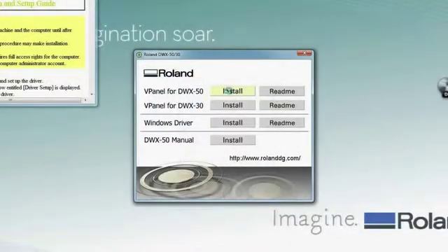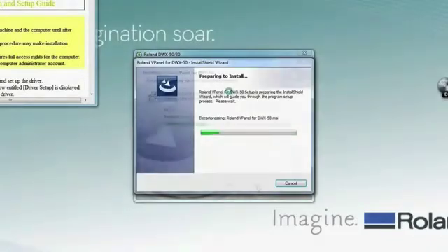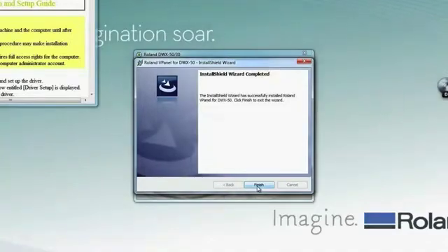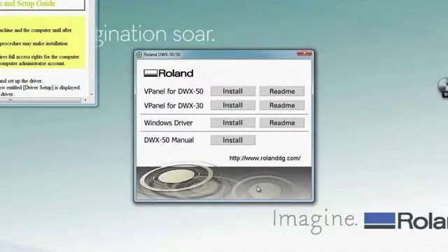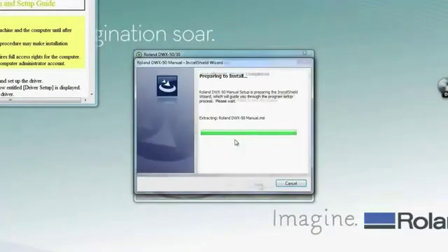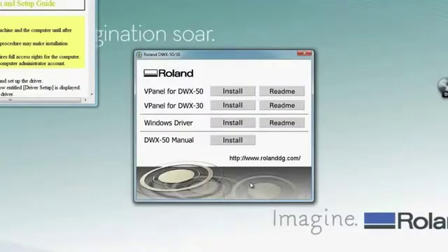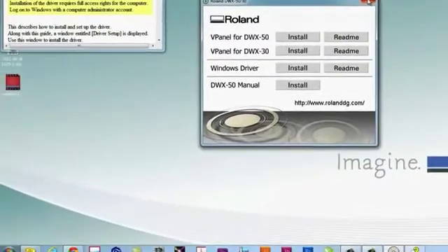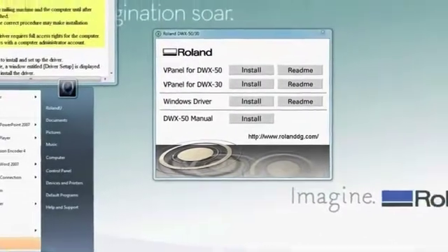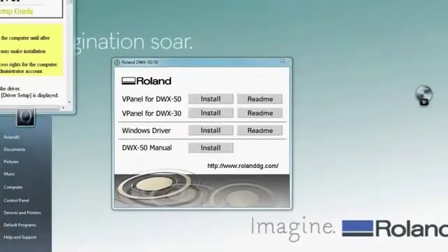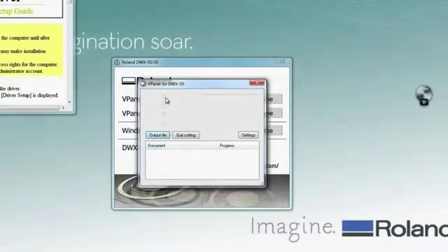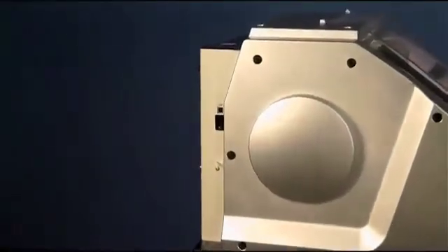Once you finish the setup wizard for the driver, your next step is going to be to install the V-Panel, or virtual panel, for the DWX 50. Simply click on install and follow the wizard through that process as well. Once completed, you'll install the last DWX 50 manual, which is the electronic version. Once everything is complete, you should locate your V-Panel or virtual panel in the program section in your computer. When you open it up, there will be no machine until you do plug in the USB port for the DWX 50.